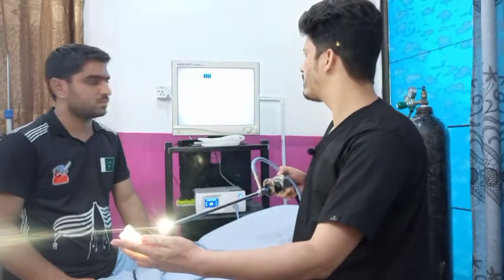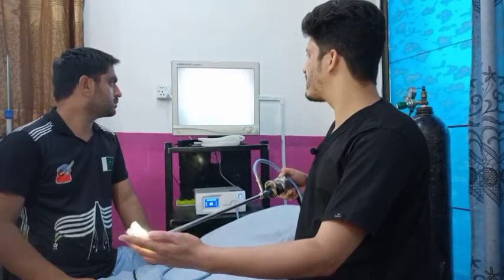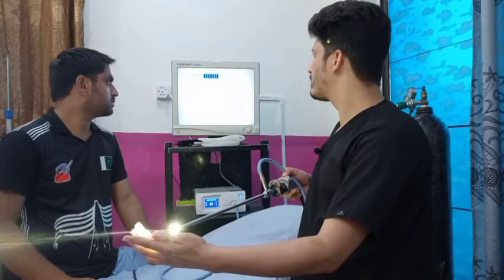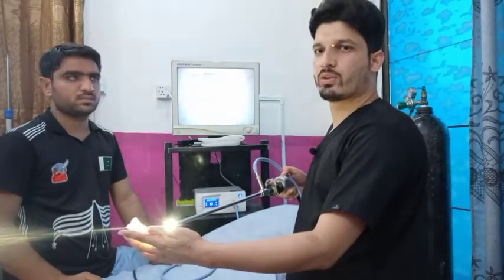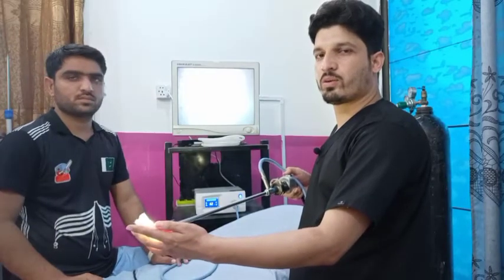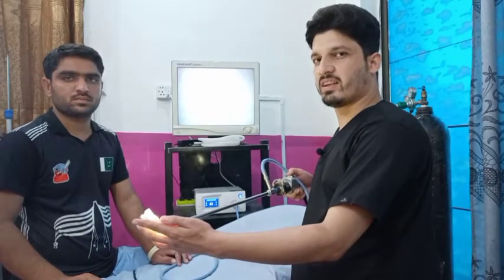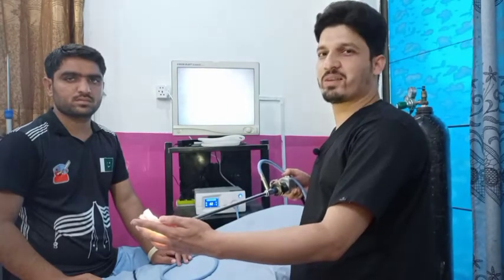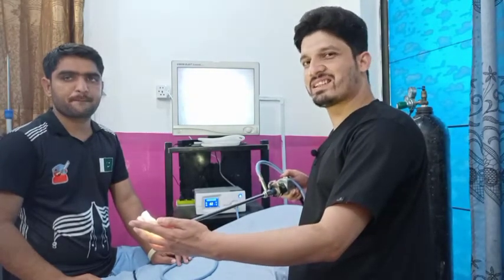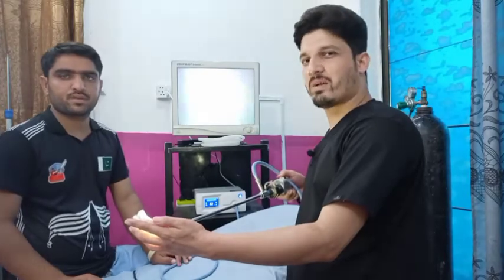I am pressing the W button now, and finally the white balance is complete. That's how we do the white balancing before starting any sort of surgery.